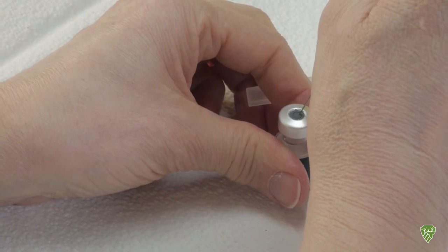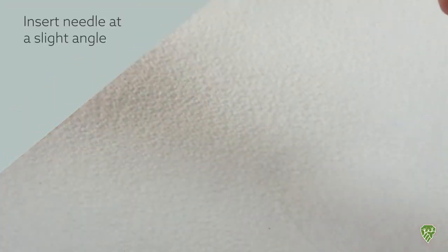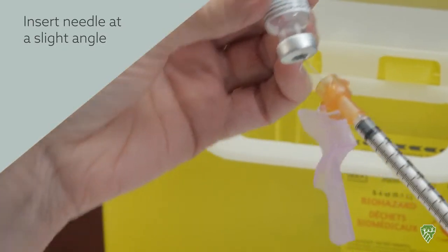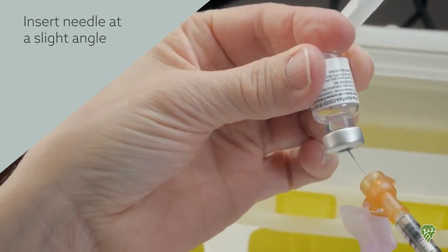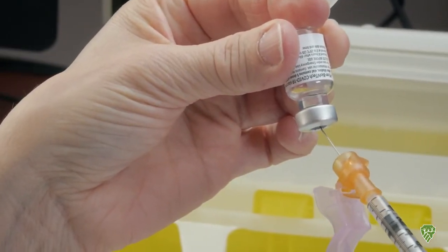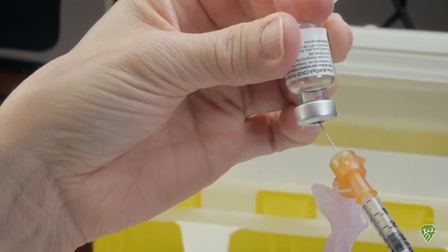I can sometimes just go a little bit on an angle with this last dose, in case I need to get the last drop in the corner of the vial.